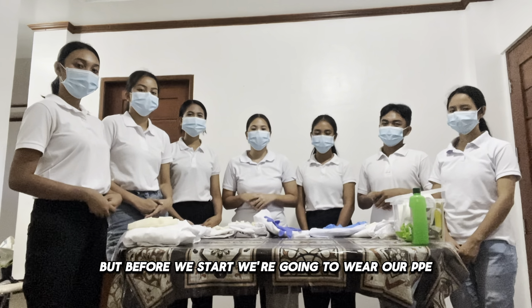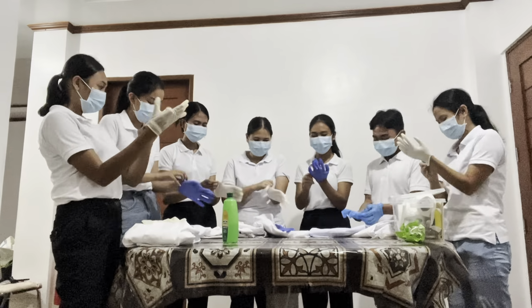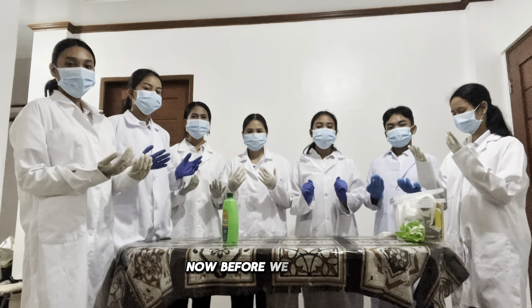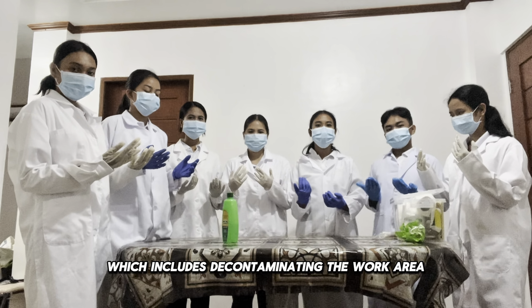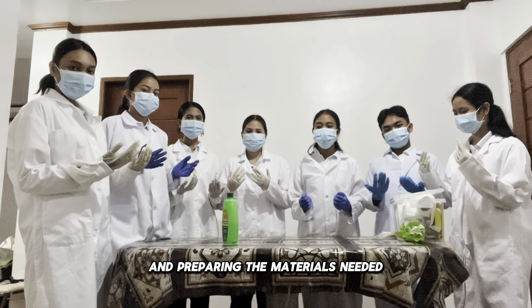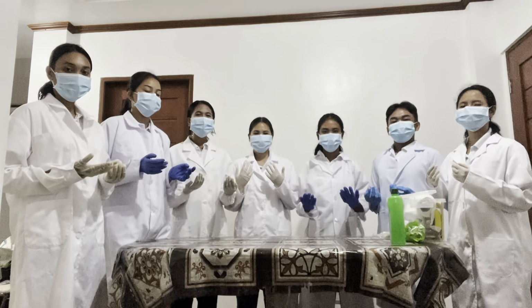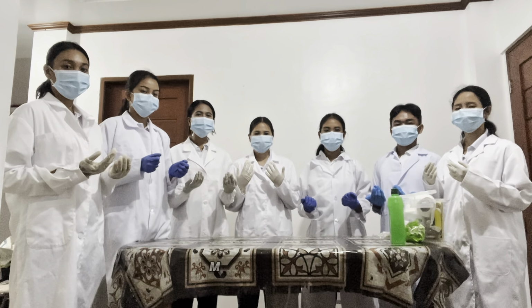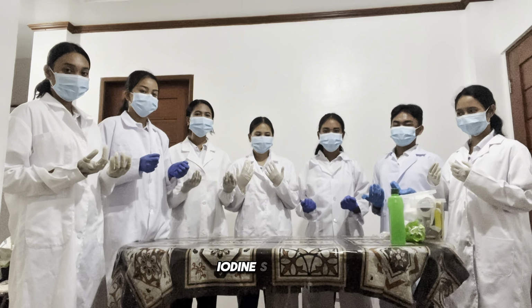But before we start, we're going to wear our proper protective equipment, or our PPE. Now, before we proceed, let us first perform a proper aseptic technique, which includes decontaminating the work area and preparing the materials needed. For the materials needed, we need a Manila paper, applicator stick, microscope slide, dropper, cover slip, NSS reagent, iodine solution, and stool sample.